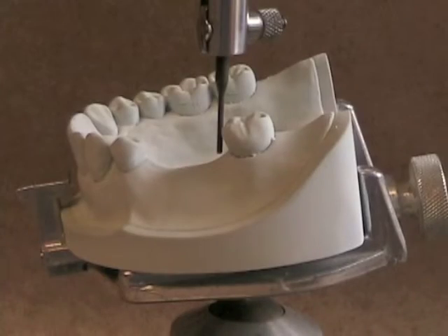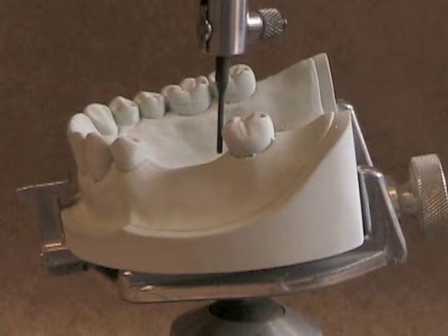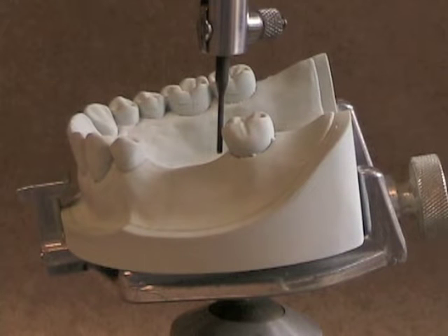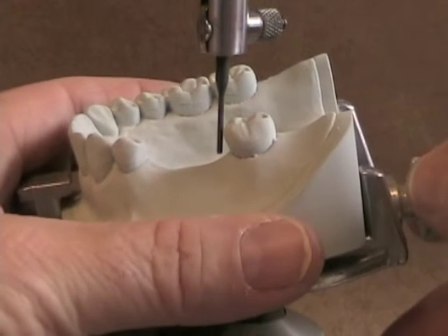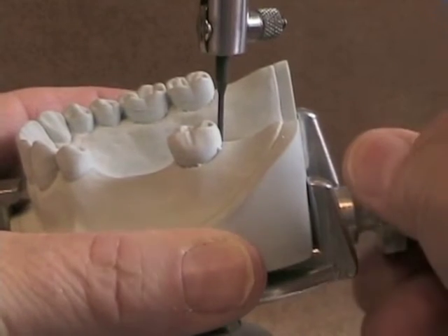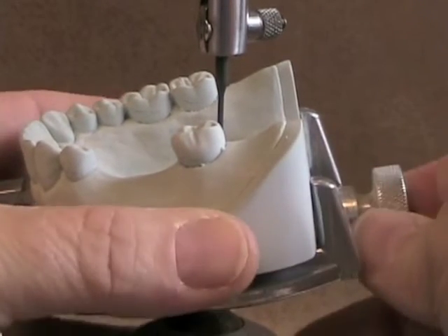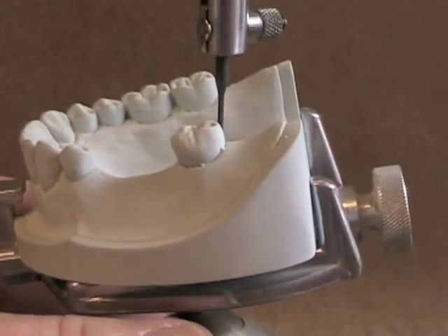Let's look at selecting a path of insertion for this Class III partially edentulous arch. The first thing you want to do is take your cast and make sure that you've got it on your cast holder, that it's tight and it won't wobble.